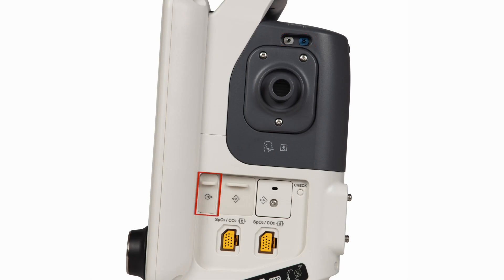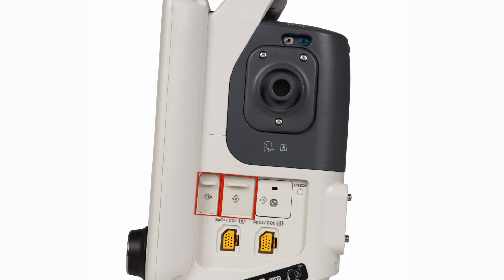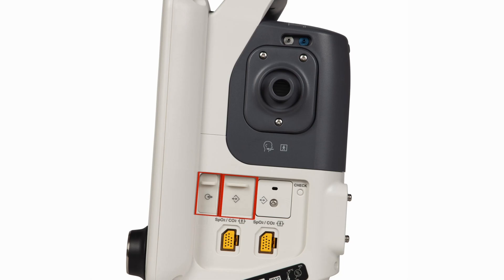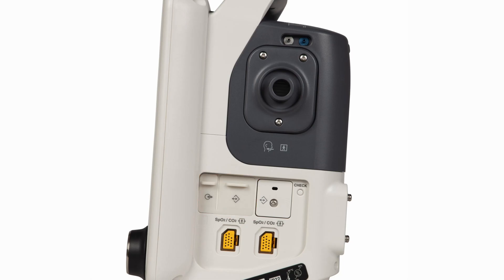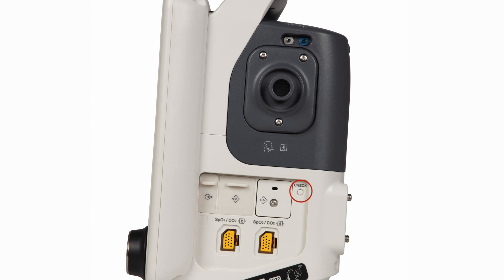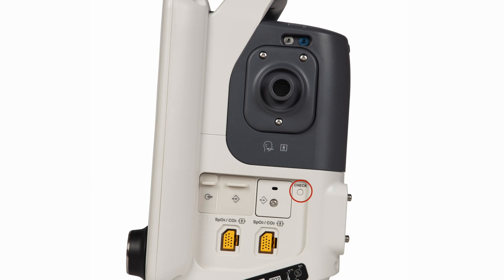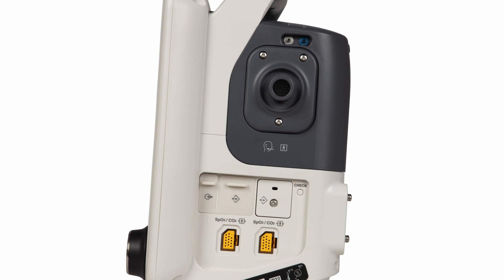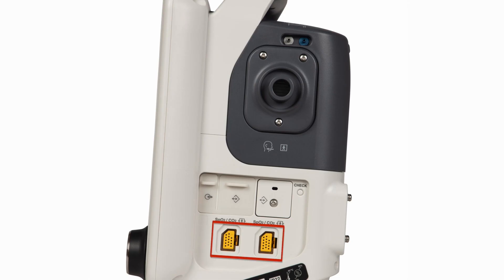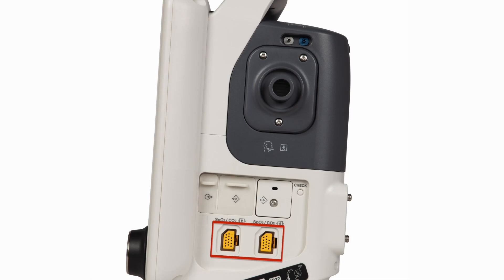A USB port and SD card slots are used for downloading settings, saving data, and updating software. A check button provides access to the system configuration and technical screens when pressed and held during power up. There are also two connectors for attaching Nihon Kohden CO2 and SpO2 sensors.